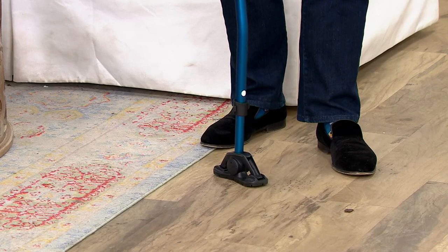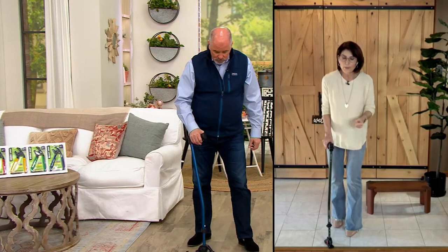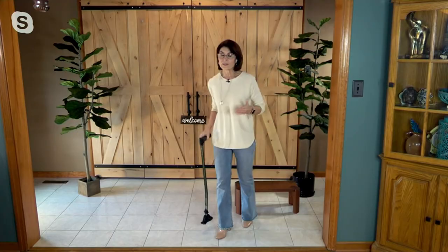That's the intention of a cane. When you have a cane that works with you, not against you — you're not trying to fight it — everything goes smoother. If you're going uphill or up a step, it's maintaining the contact. When you're coming down, you're not hunching. This is there, it's just working with you. It's going to be a fantastic cane.